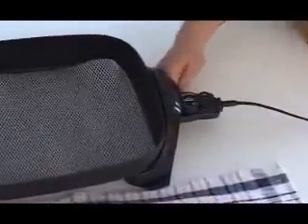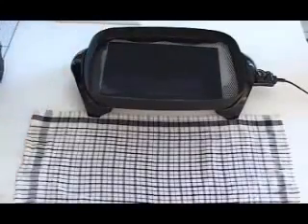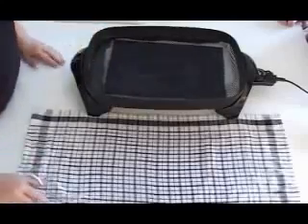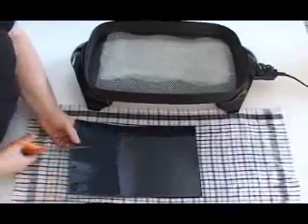Preheat the electric heating pan with about 2 inches of water. Bring the water to just under the boiling point, about 200 degrees. Place the thermoplastic material into the hot water. Using tongs, frequently check the pliability of the material and remove it when soft. Softening should take about 1 to 3 minutes. Place the material flat on a cotton towel and pat dry if necessary.